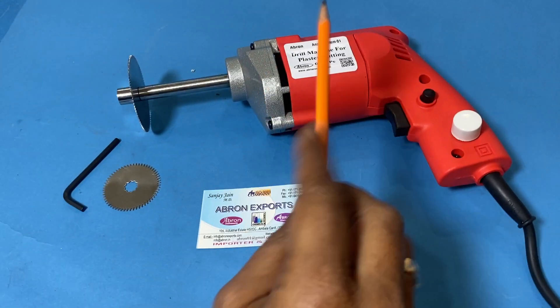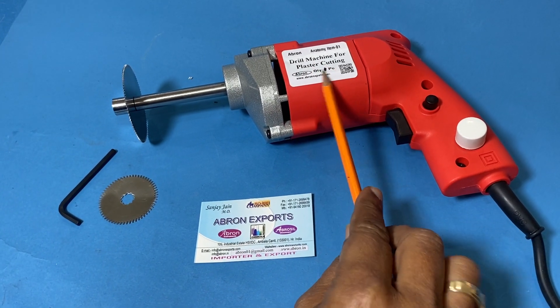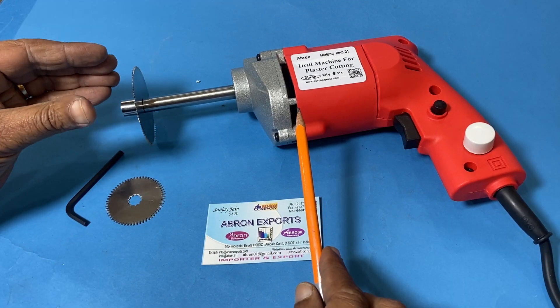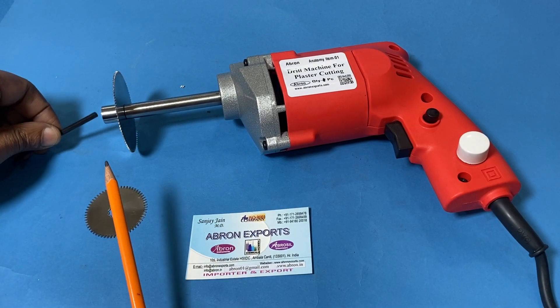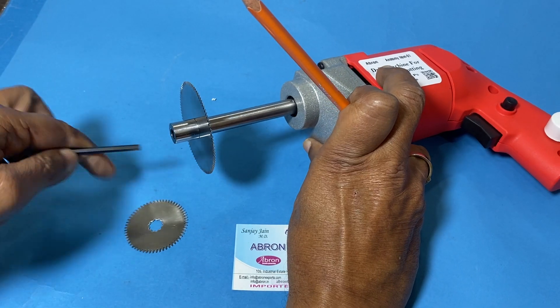Welcome, this is a drill machine for plaster cutting. This is not an ordinary drill machine — it is not going to rotate, it is going to just vibrate. There is one blade that can be changed from the front side, there is one point here.